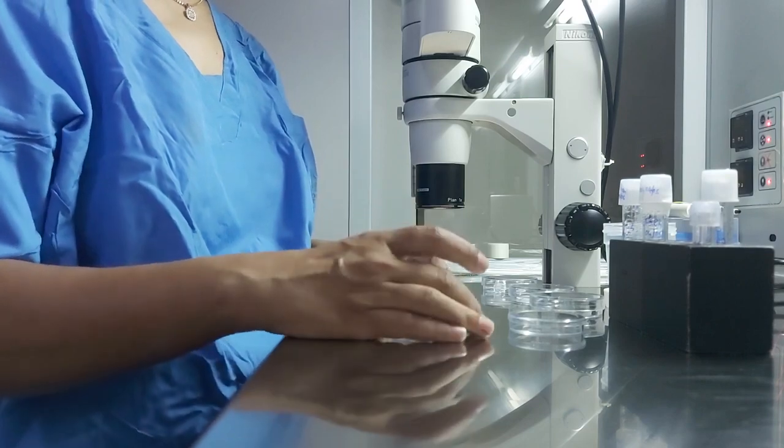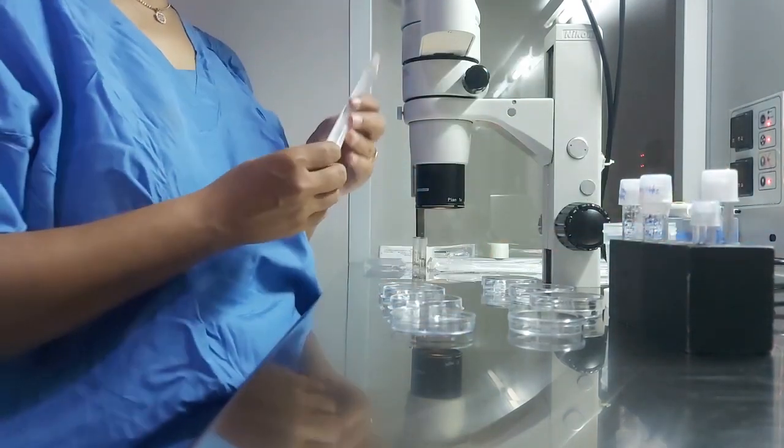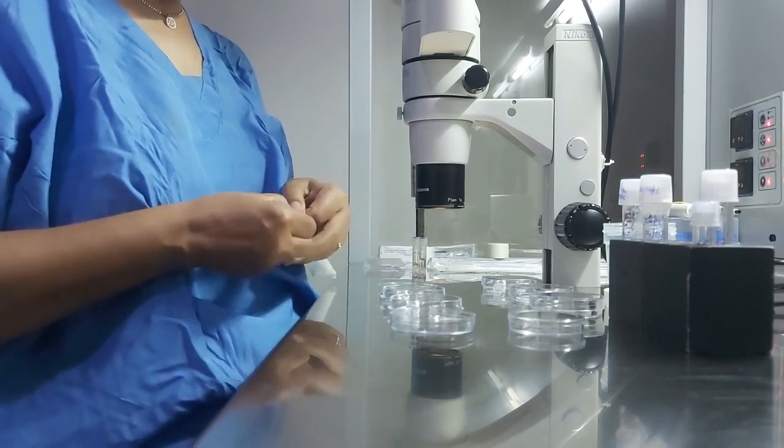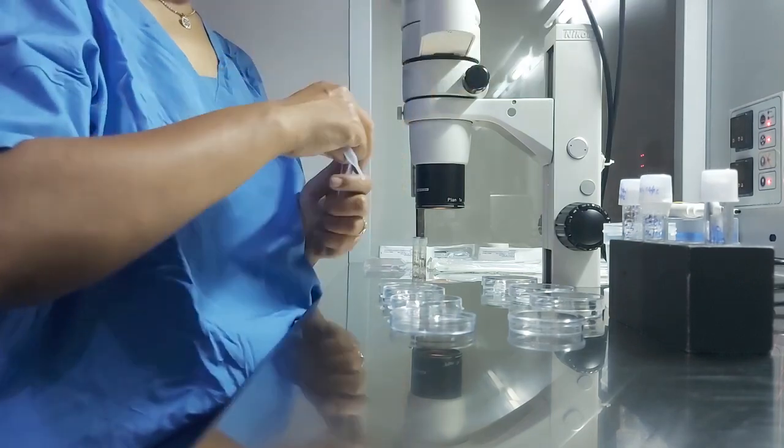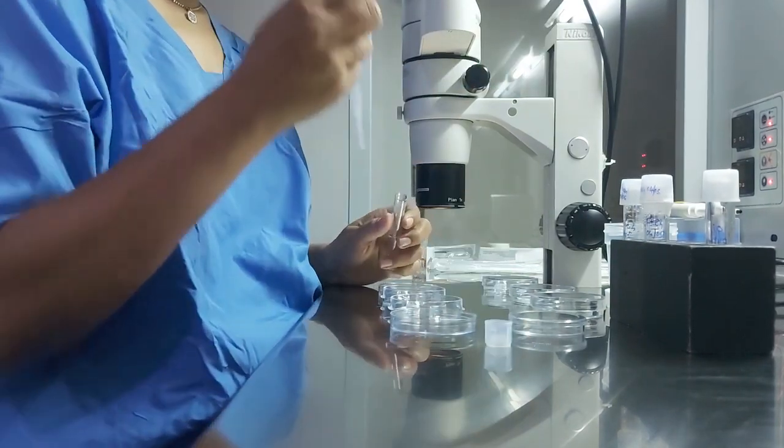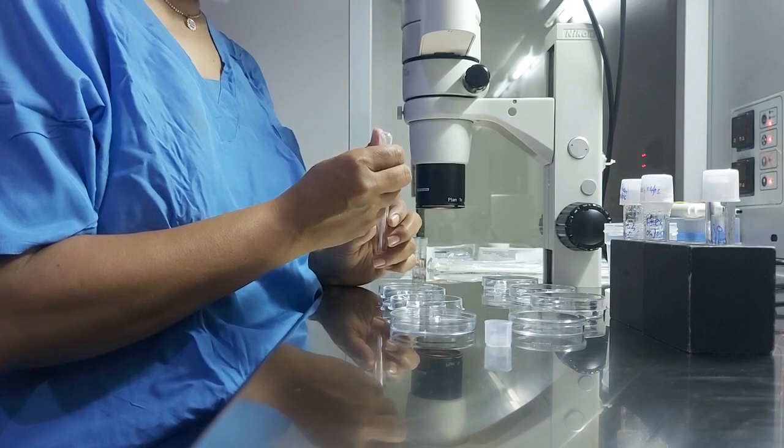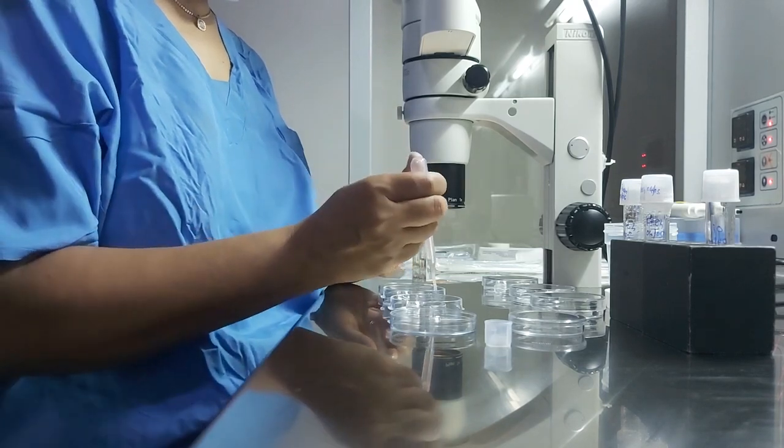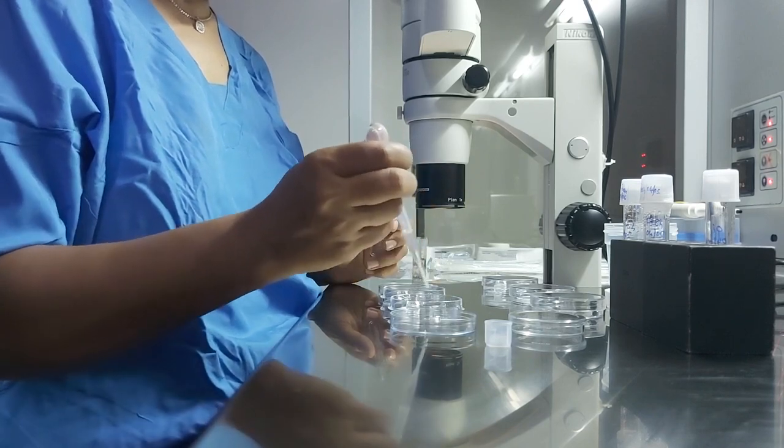So we will use cleave plates. Cleave plates or one step plates are the cultured plates which we will keep it for either 3 days or for 5 days to culture the embryos. Same 2 drops outside and 0.5 inside, 0.8.